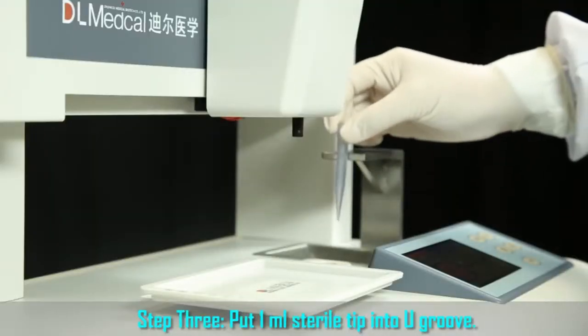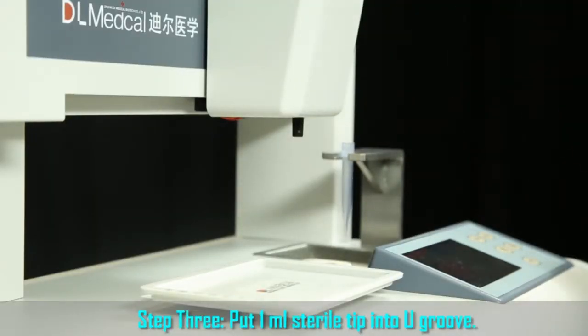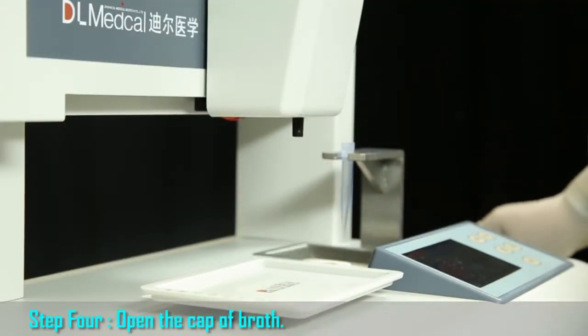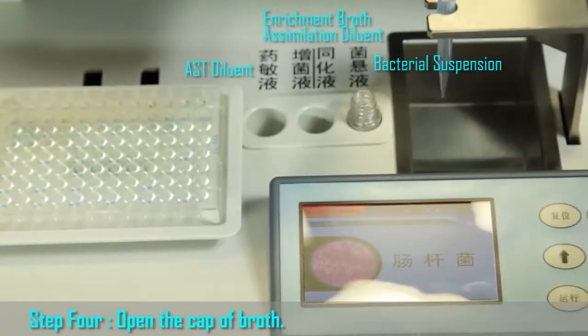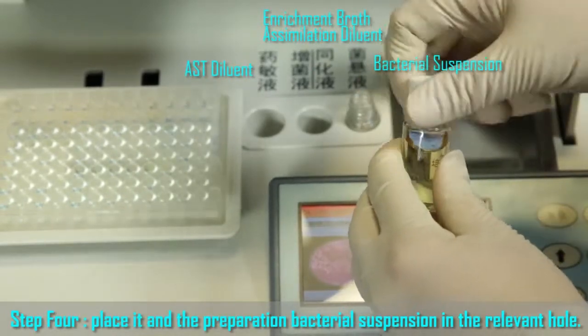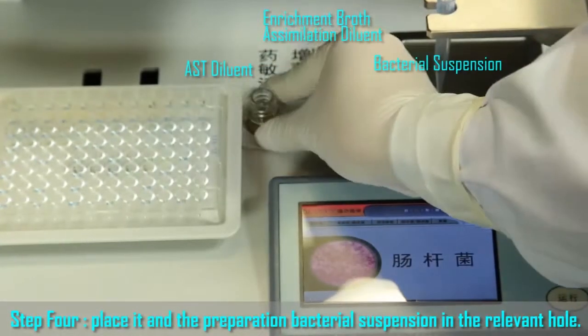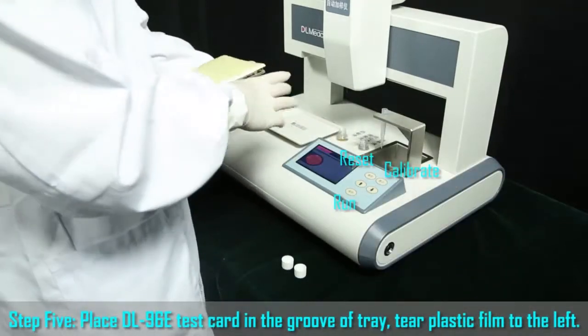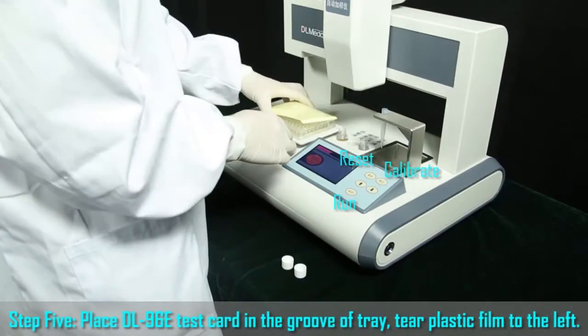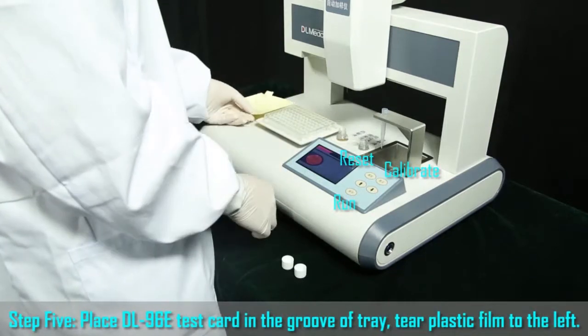Step 3. Put a 1 milliliter sterile tip into the U-groove. Step 4. Open the cap of the broth. Place it and the prepared bacterial suspension in the relevant hole. Step 5. Place the DL96E test card in the groove of the tray. Tear the plastic film to the left.